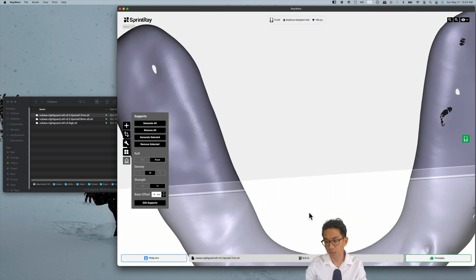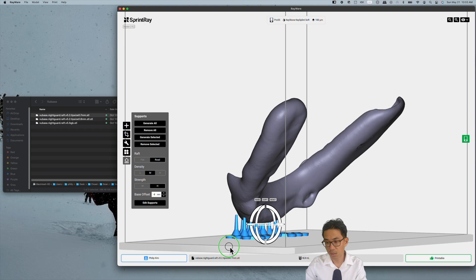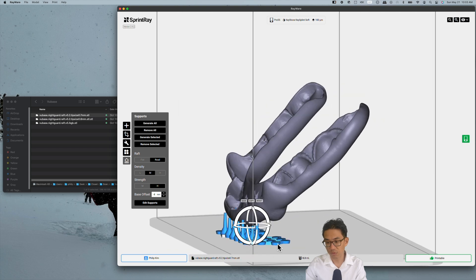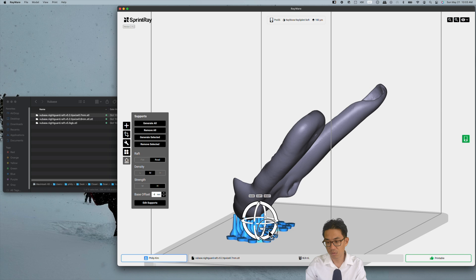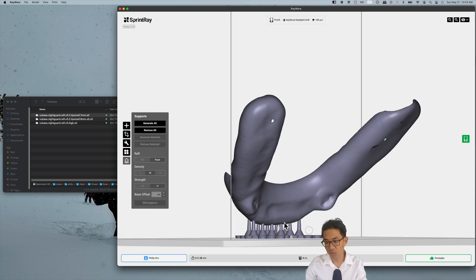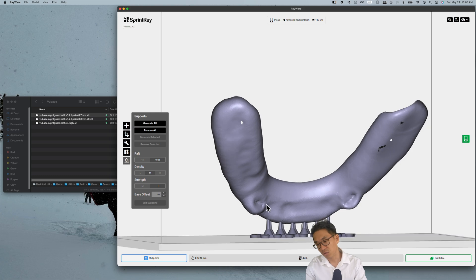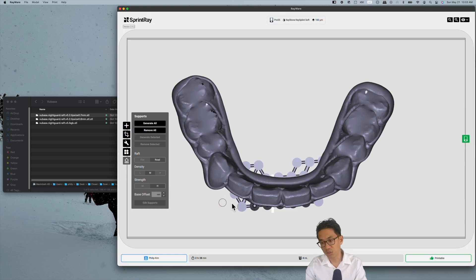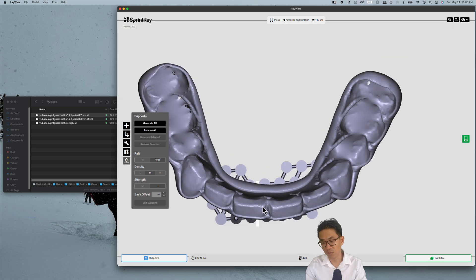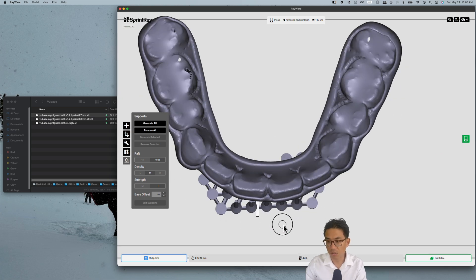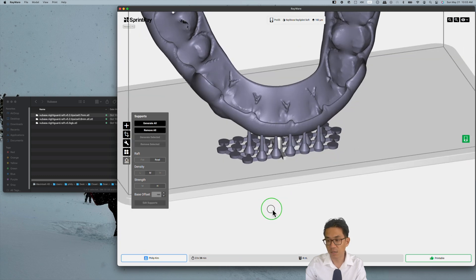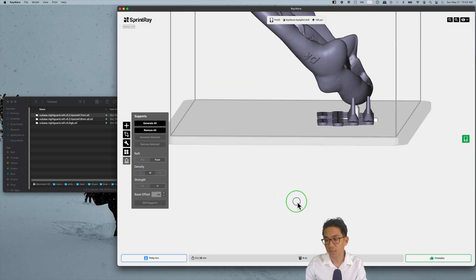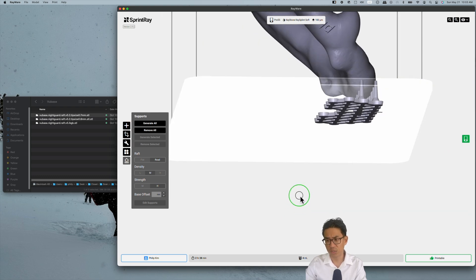When you're looking, these extrusions from the VuBase are embedded into the anterior portion of the night guard and not really on the occlusal plane. What you need to make sure is the extrusions don't end up through the intaglio surface, which here they are not as you can see. What this allows for is to print the night guard at a 45-degree angle with zero supports on the posterior, which makes for much easier cleanup and leaving the occlusion dialed in.